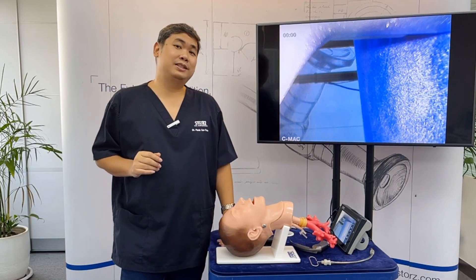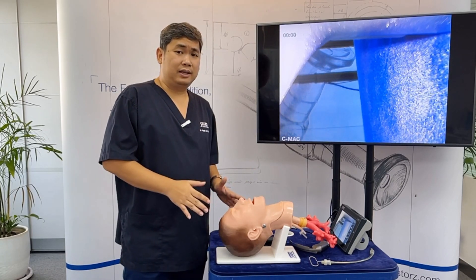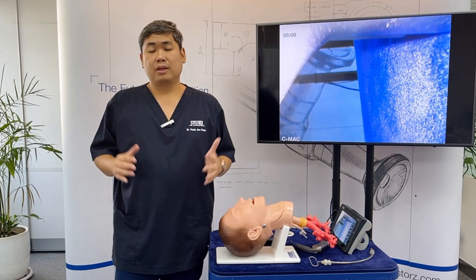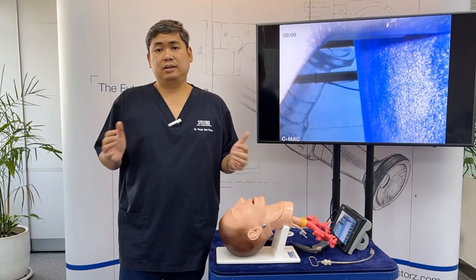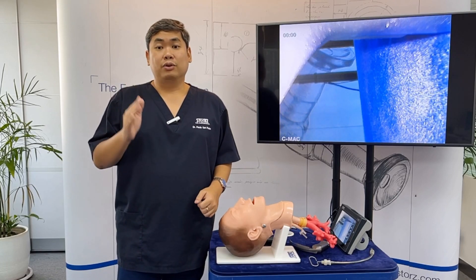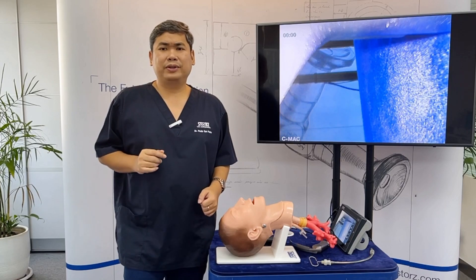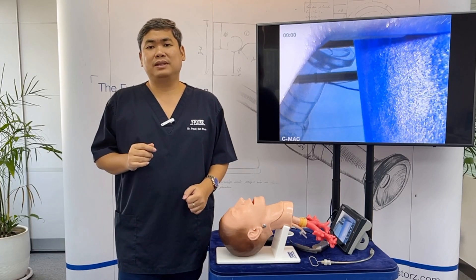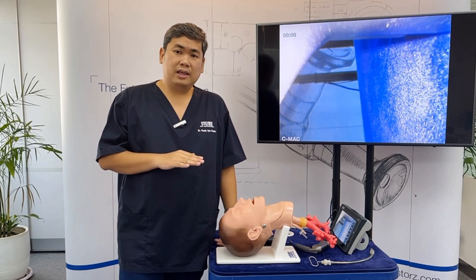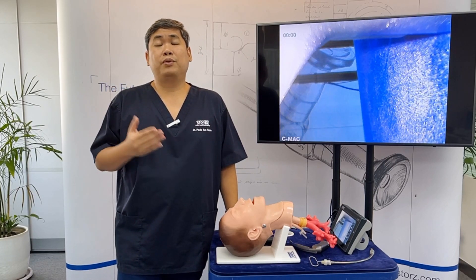While the participants are taking turns practicing video laryngoscopy on the mannequin, discuss the advantages of having a better view. First, you have a high success rate and a higher first-pass success rate. This is important because succeeding intubation attempts increase difficulty — you have more swelling, more secretions, and a possibility of more bleeding.